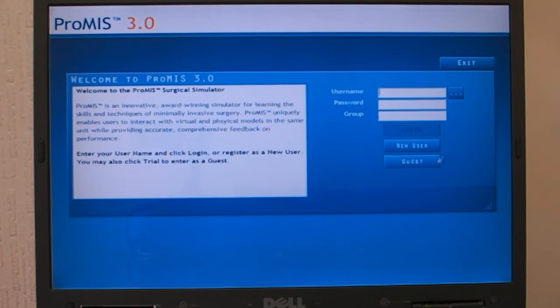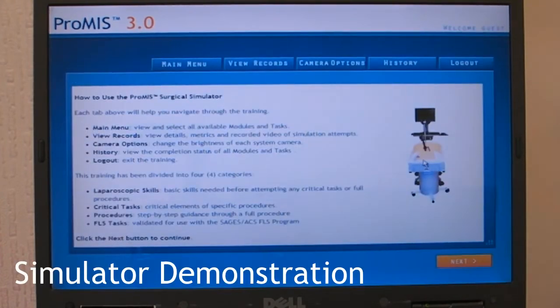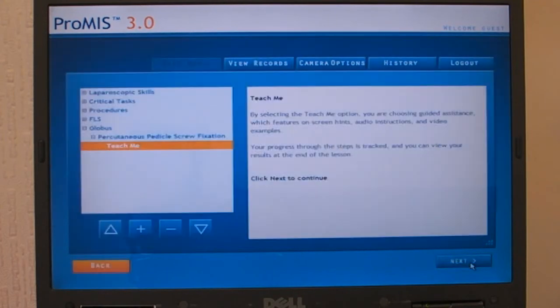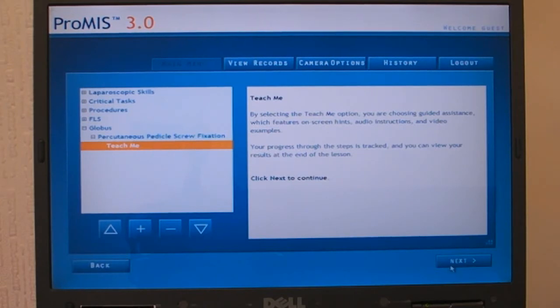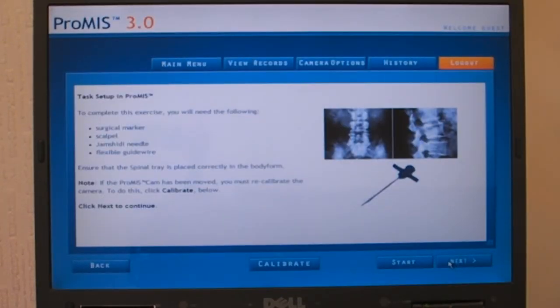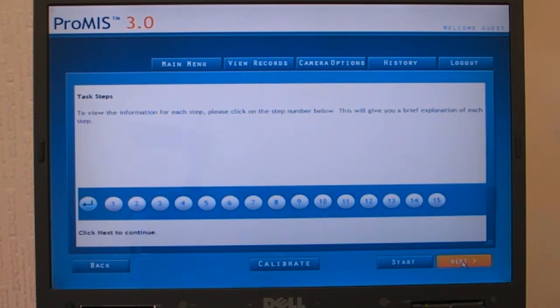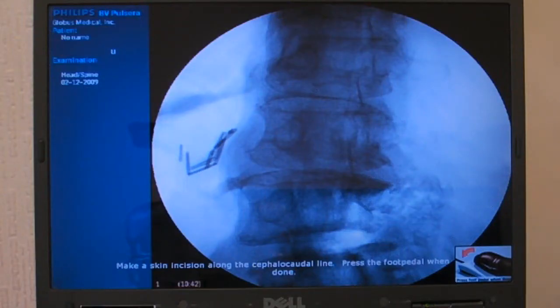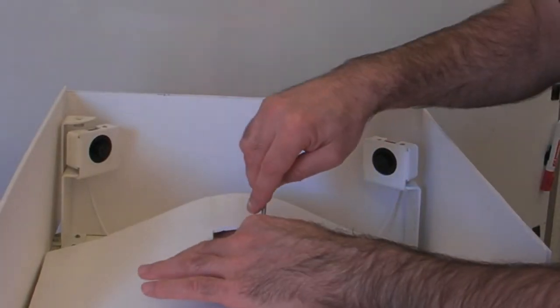These screens show how the user interacts with the simulation. First, the user selects the task and gets information, along with a video showing how to perform the procedure, including a video of the real procedure. Each user enters their unique username and password, enabling complete records of all users, including performance metrics, to be recorded. One of the first steps in the task is to take anterior and posterior fluoroscopic images.